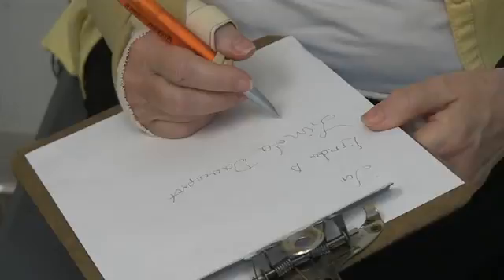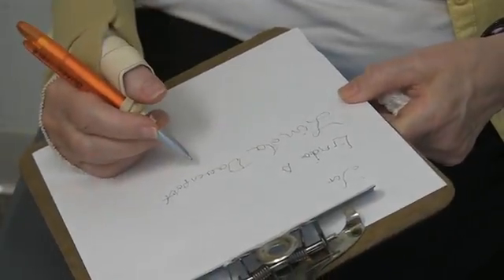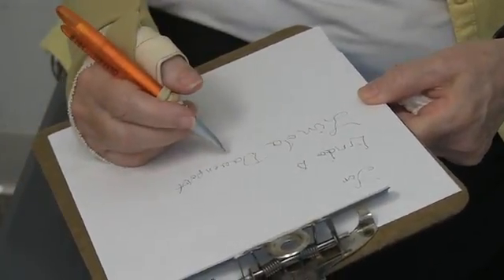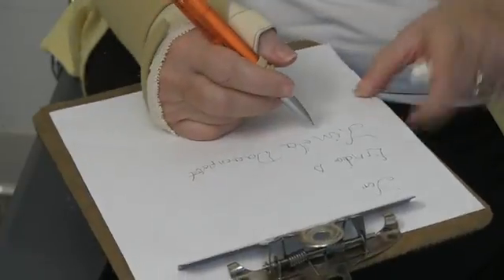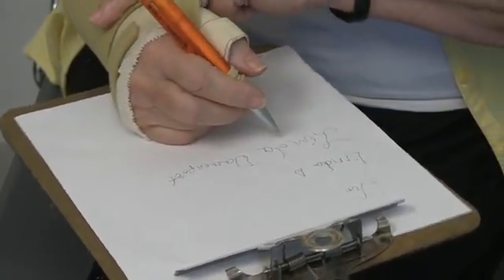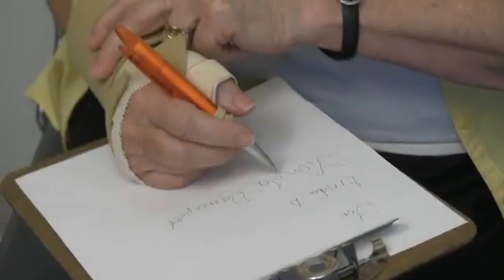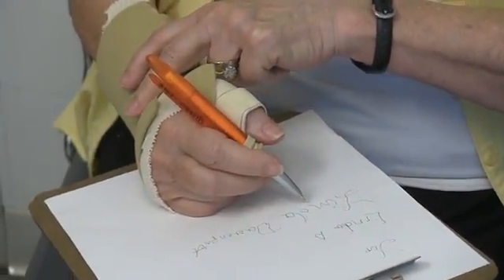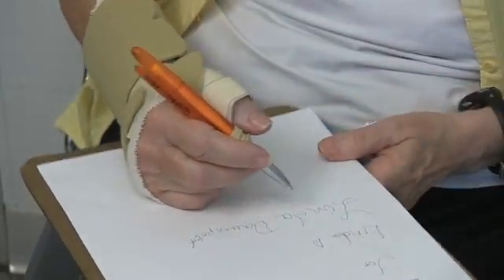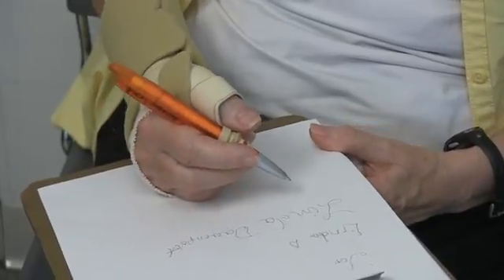I love this because I'm able to write my name. It takes me a little more time to learn how to do that, but that is great. But also this is giving my wrist stability, so I don't fear that I'm going to break it by falling or something. It's giving me strength, so I'm excited about it. It's great.